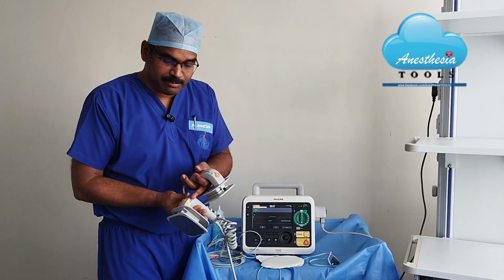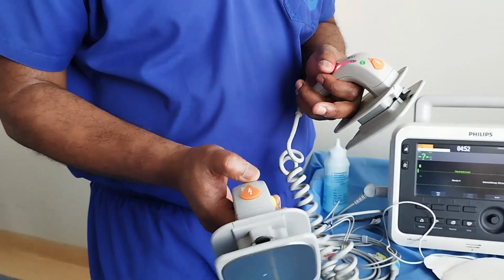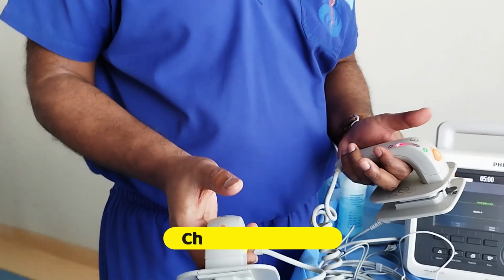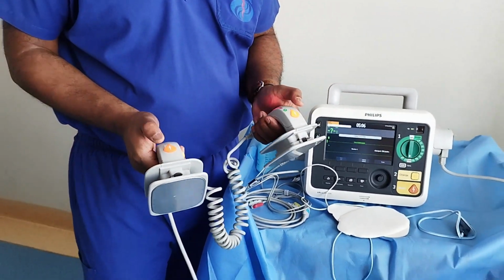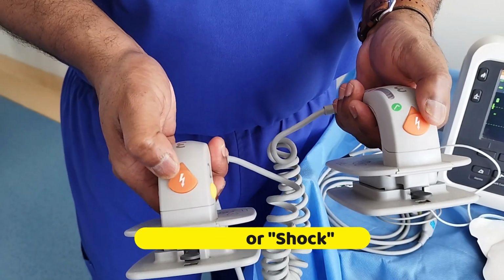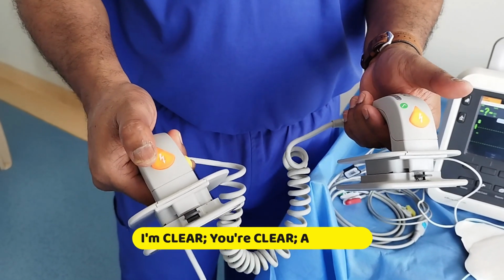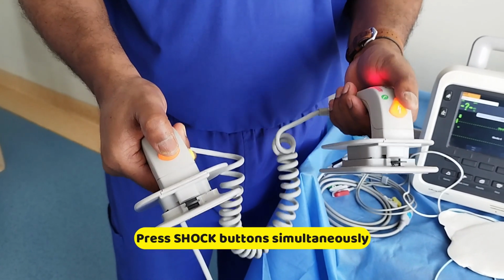And now you can use this button. This again is the yellow button with number 2 written over it. Since the energy is dialed on the main unit, we can simply apply the yellow button. You can hear the machine is charging between these paddles, and now you can see the buttons for defibrillation or shock flashing. So you apply to the patient's or victim's body firmly. Make sure you are clear, all are clear, nobody is touching the victim, and then press these 2 buttons simultaneously to deliver the shock.